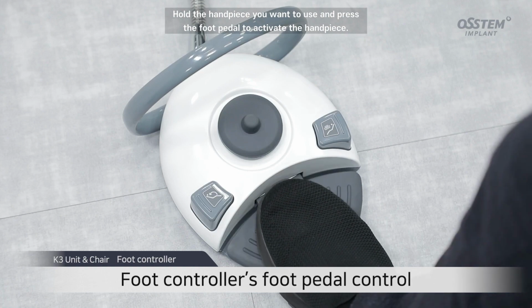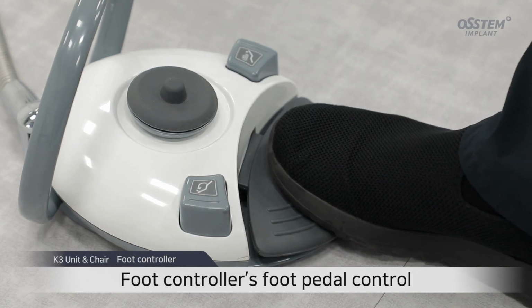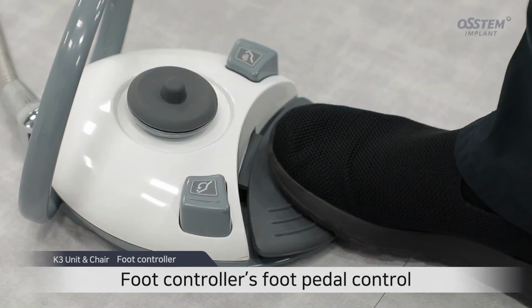Hold the handpiece you want to use and press the foot pedal to activate the handpiece. The harder you press the pedal, the higher the RPM of the handpiece.